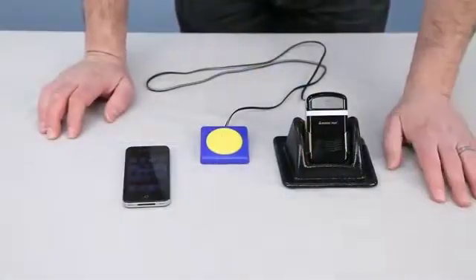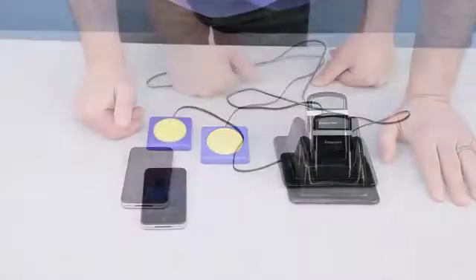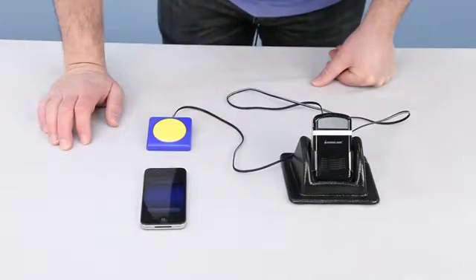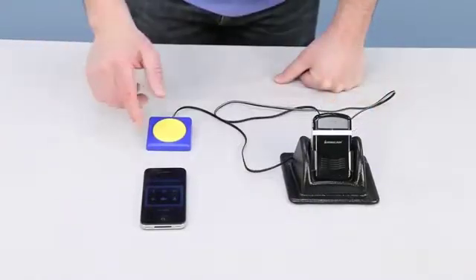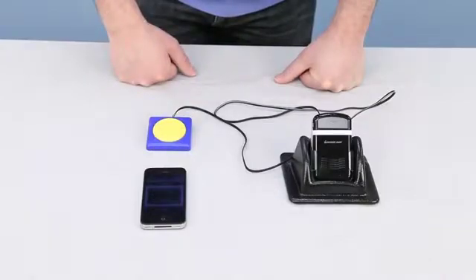Real simple, just to show you how you place a phone call, just press your switch down once. Siri, call enabling devices. Just simply end the call when you're finished — just hit your switch again and it will end the call.